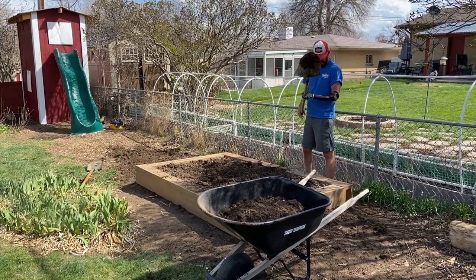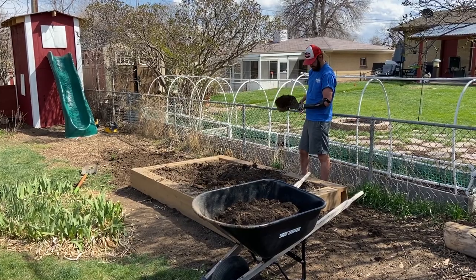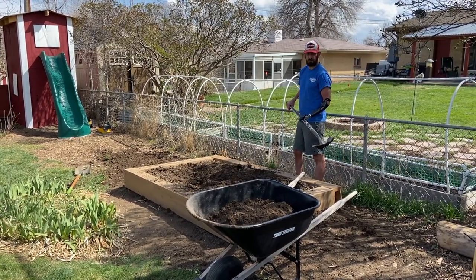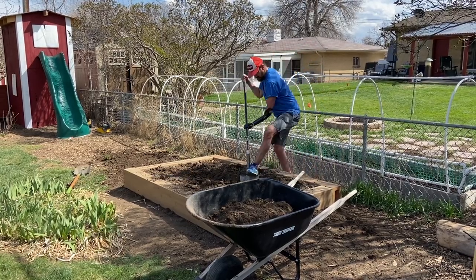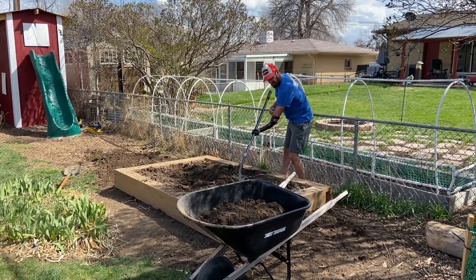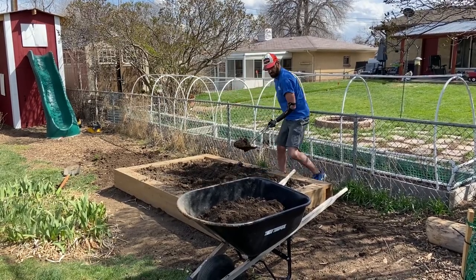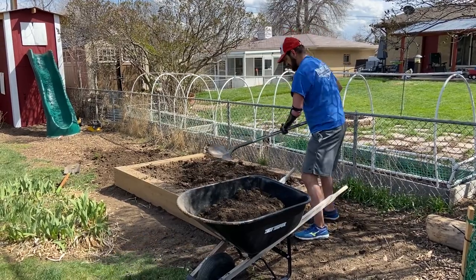I got the TRS jaws with the Biodesigns prosthetic and the TRS jaws attachment. I just wanted to show the strength of this. We upgraded the spring, but what really helps is now I don't have to use my elbow to put the shovel in here, so I don't run the skin. I can use this jaws to pick up shovel loads a lot easier.